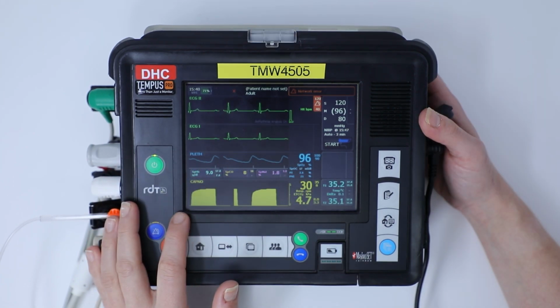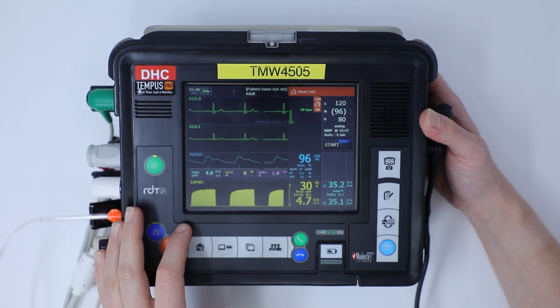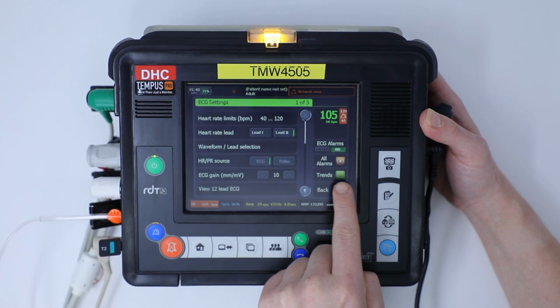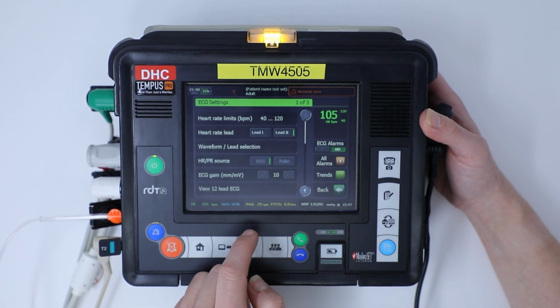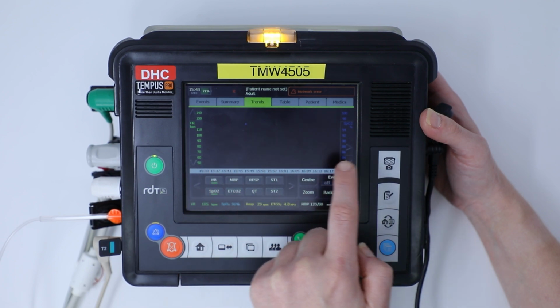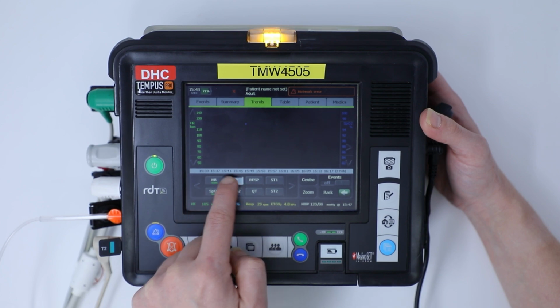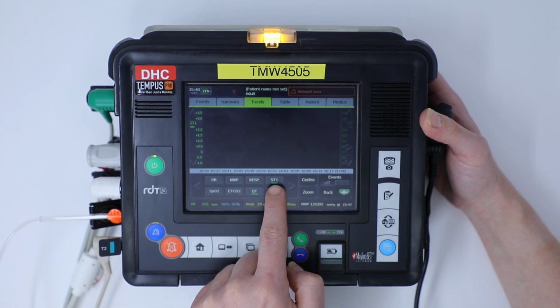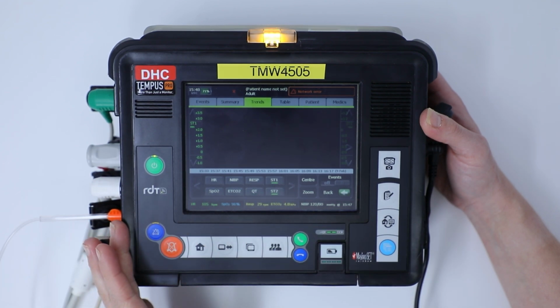In each of the vital signs, you can also look at trends of each individual parameter. So say, for example, I look at ECG. Along the right-hand side, and this applies to all of your vital signs, you can click trends, and it will come up with a graph with a time bar across the bottom of all the different heart rates that sits across that timeline. You can click across the bottom, you can highlight up to 2 at a time, and it will track your trends as to how your vital signs have changed over a select period of time.